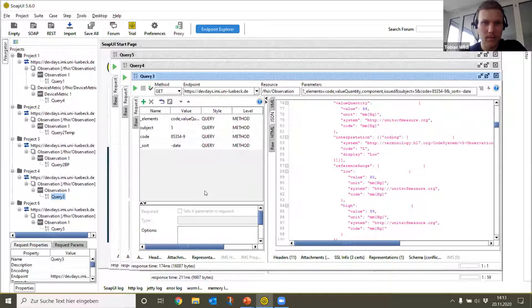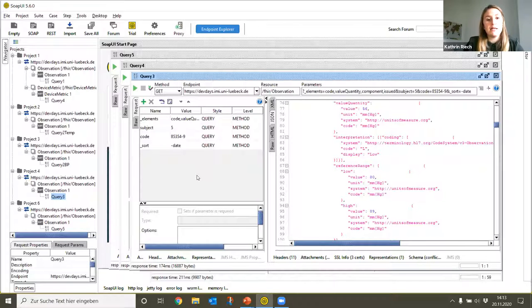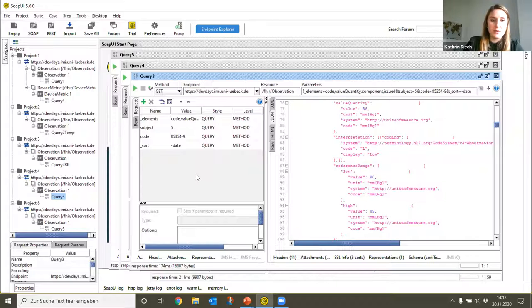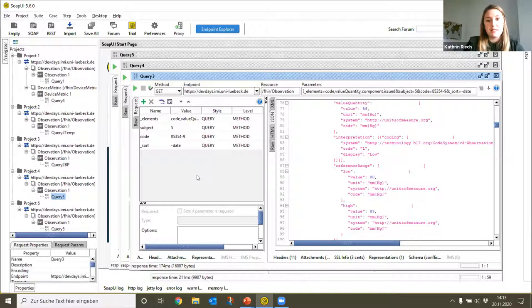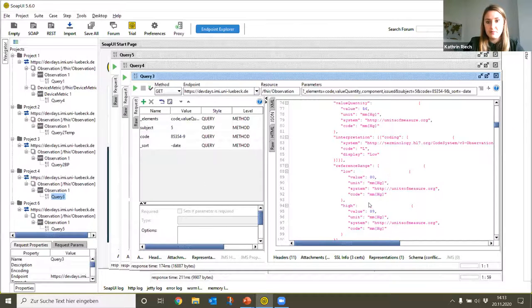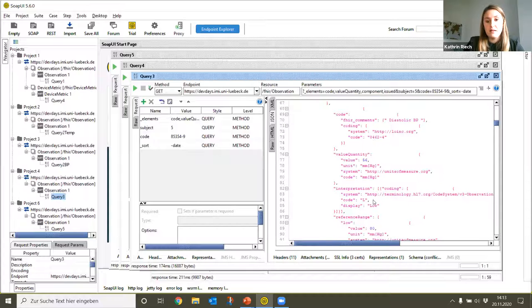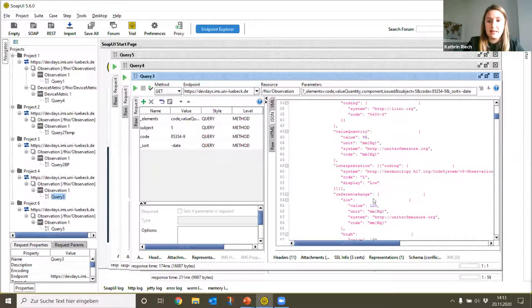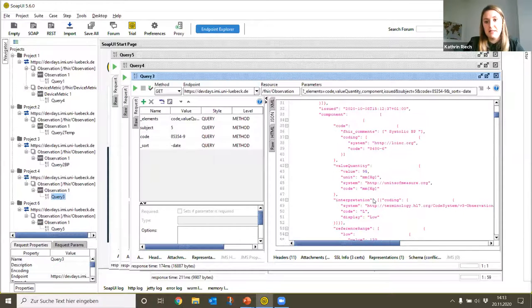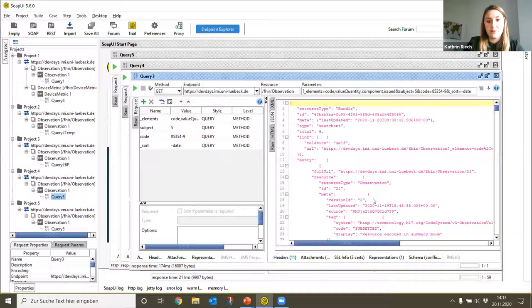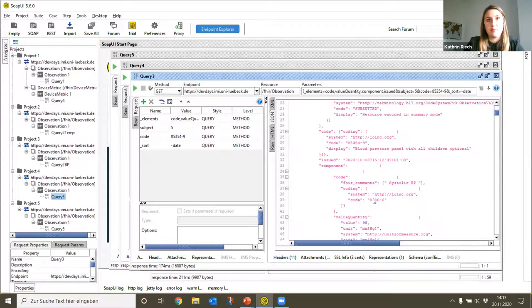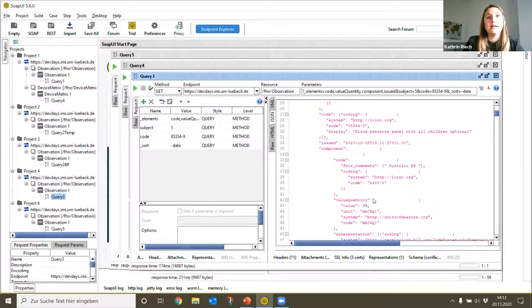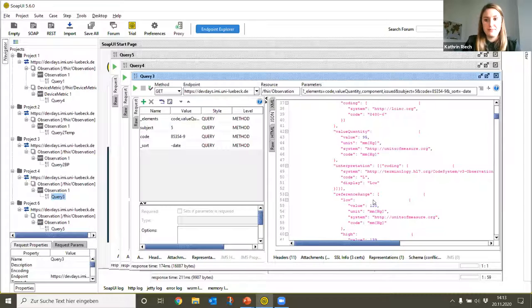If you want to know the blood pressure measurements of the last hours, we simply use the query before. We just omit the restriction that count equals one in the query, so it is possible to see all the measured values. They're all displayed here in the output panel, and when we're scrolling through them we can see that the blood pressure values are decreasing over time for our patient.